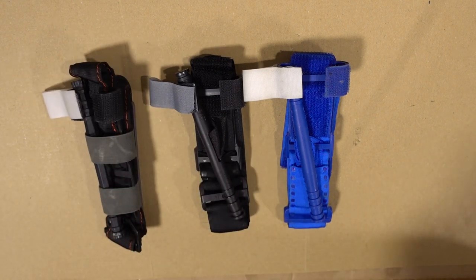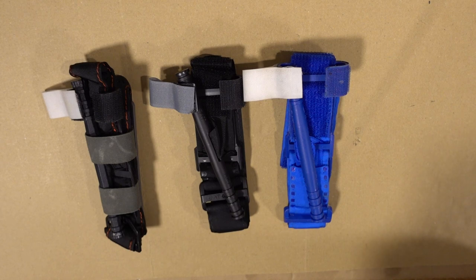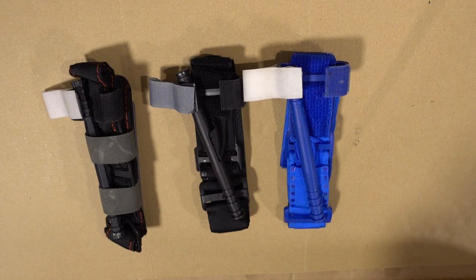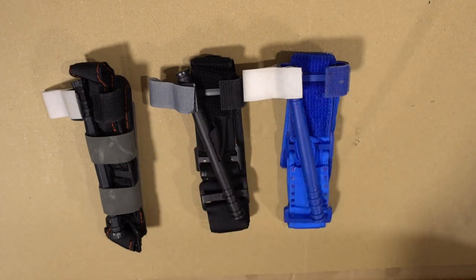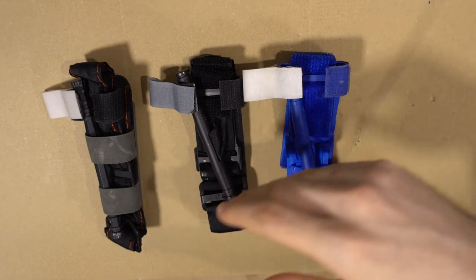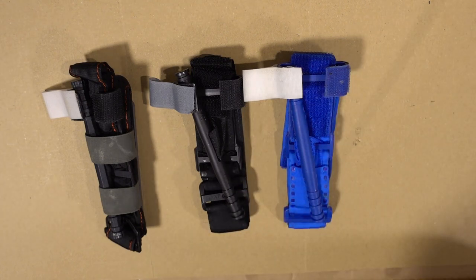First, a small disclaimer. I'm not a professional in this topic. I did attend first-aid courses as well as some courses that were more leaning to combat first-aid. The first thing is when do you use a tourniquet?